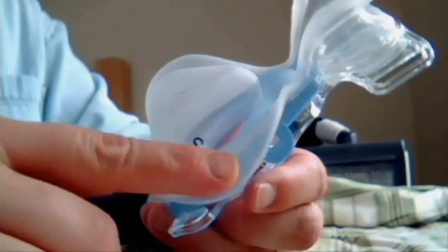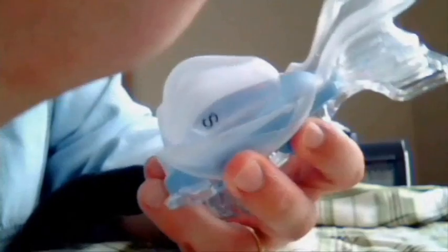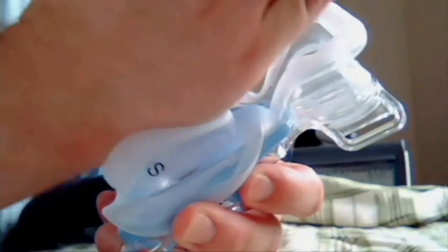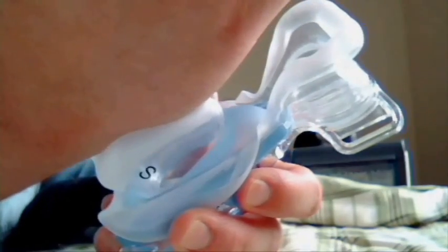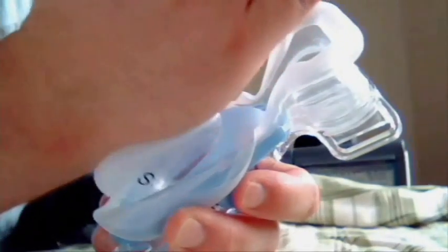Here's the brand new Respironics Easy Life, and this also has one of these brand new mechanisms that comes out and engages. There's the air coming on — see it going up and down. Watch how much this thing gives. You aren't going to have to fight to tighten the straps. See, it just engaged and jumped out and grabbed my hand. Look at the right and the left on this. This is something you can go all night without a leak with.